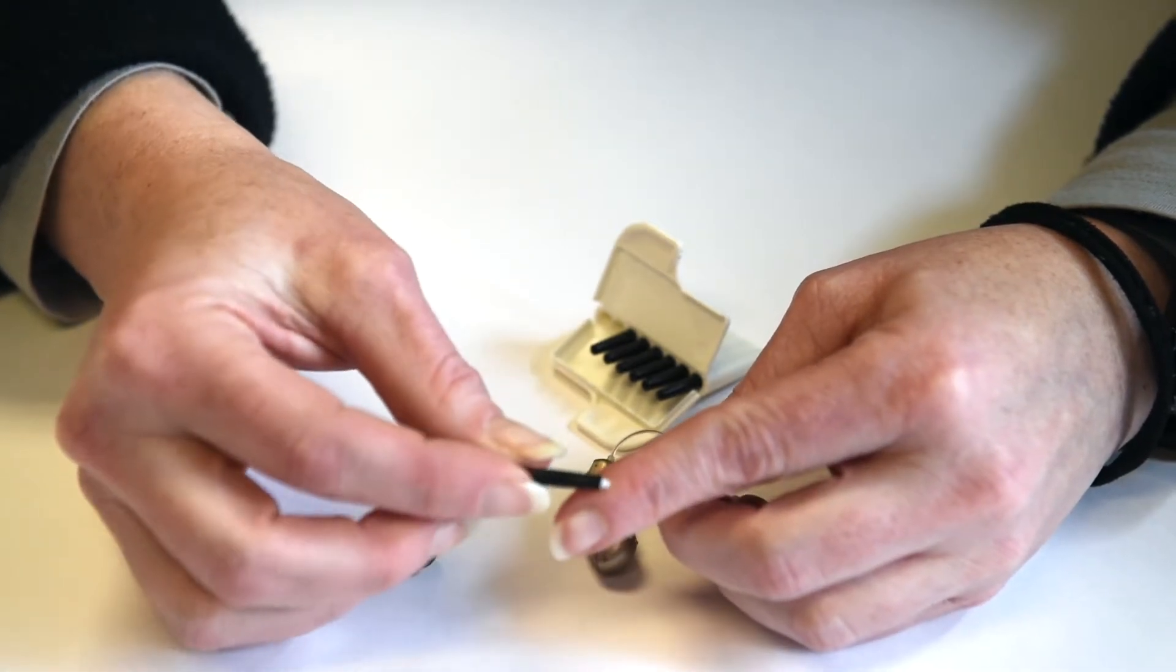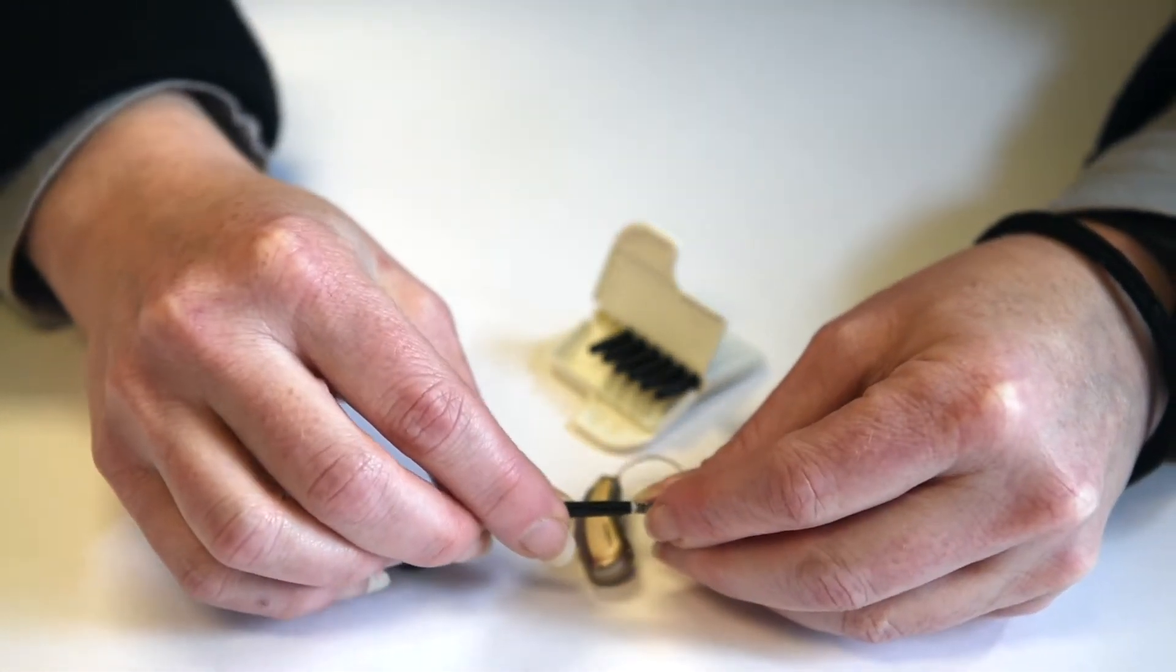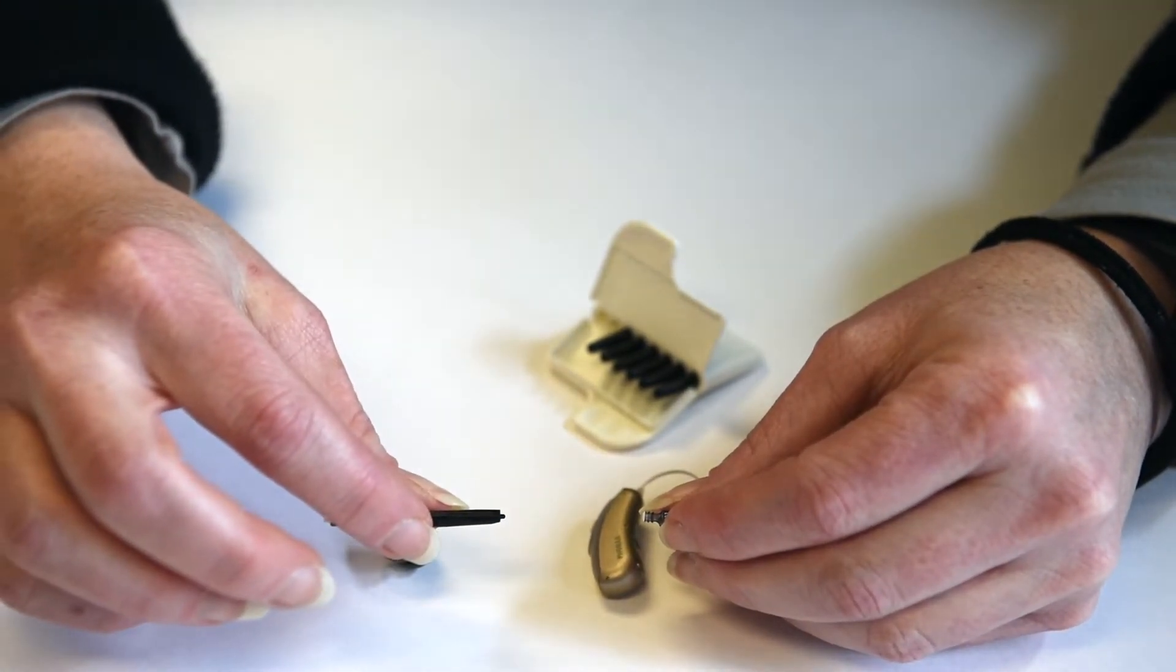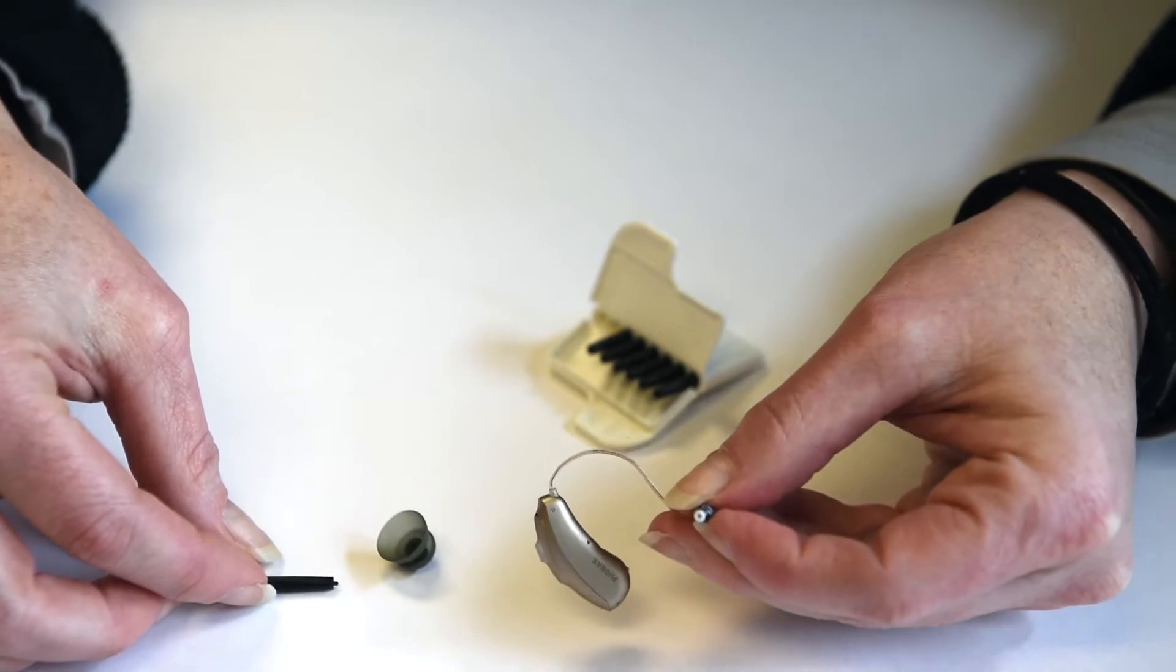You're going to spin the stick around, and you're just going to poke the new filter in. Same thing, just pull the stick out, and now you can see the new filter is left behind.